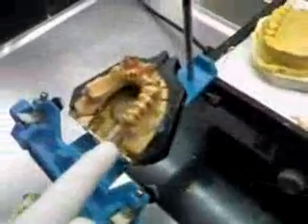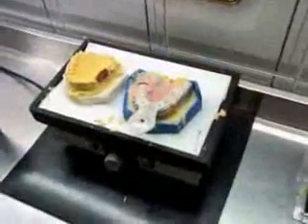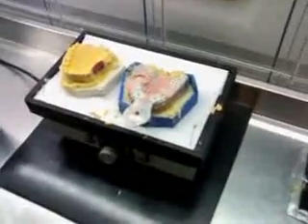It will be ready to go back into our articulator. Right now the articulator shows the master model on it, which will be saved. We will be repositioning this new model, but we will still be using the master model during some working phases. We will let it sit now for about 45 minutes to one hour.